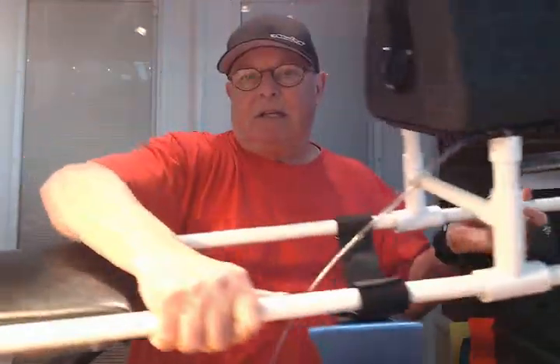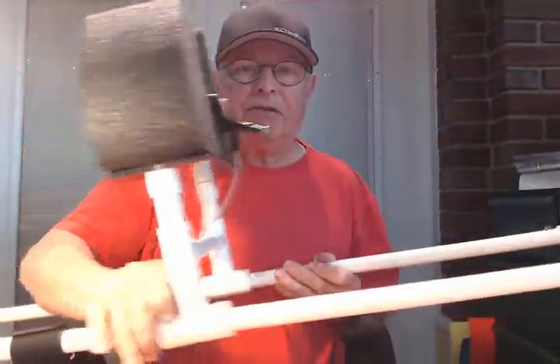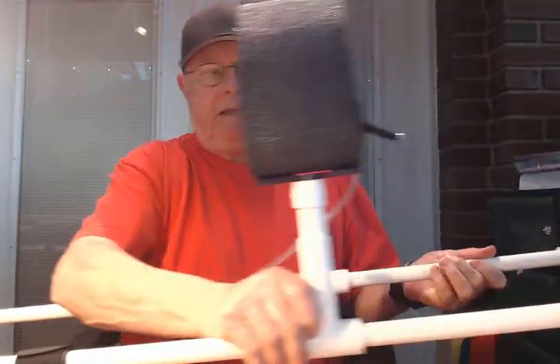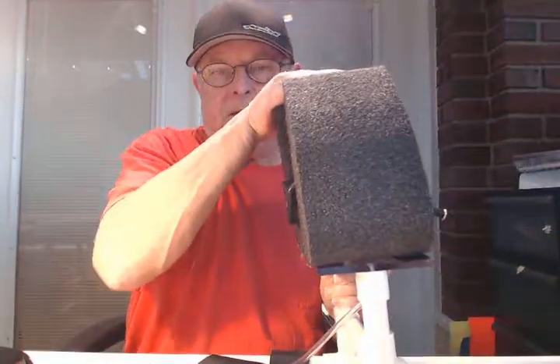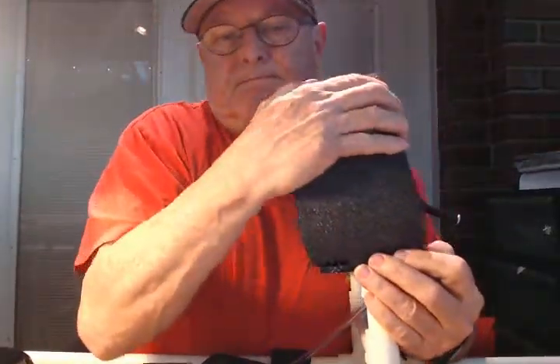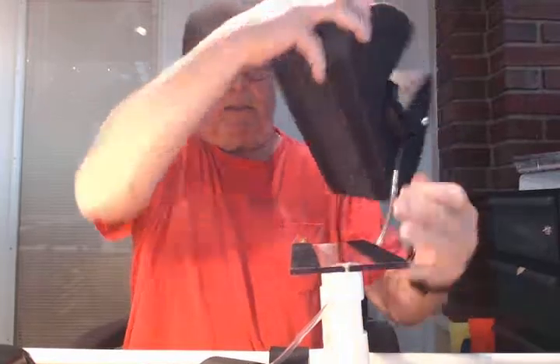This is kind of what it looks like — this is the seat area. What you do is you lengthen this out; it's totally adjustable for length. And then you put your heel up in this bolster, and peel this thing out like this.